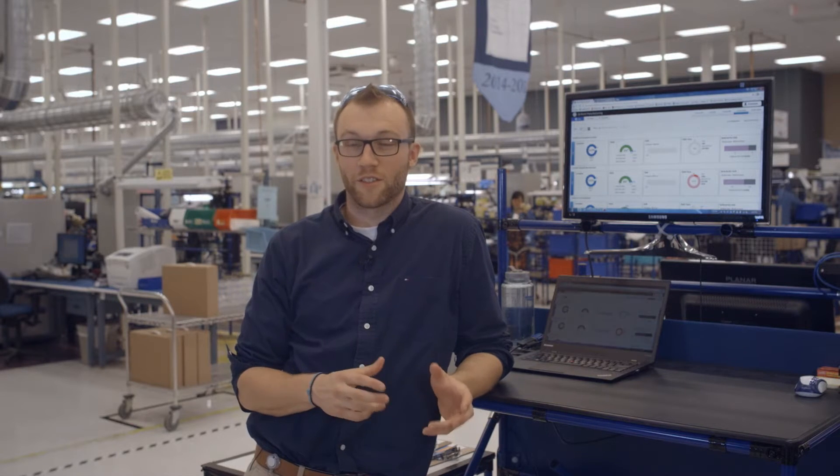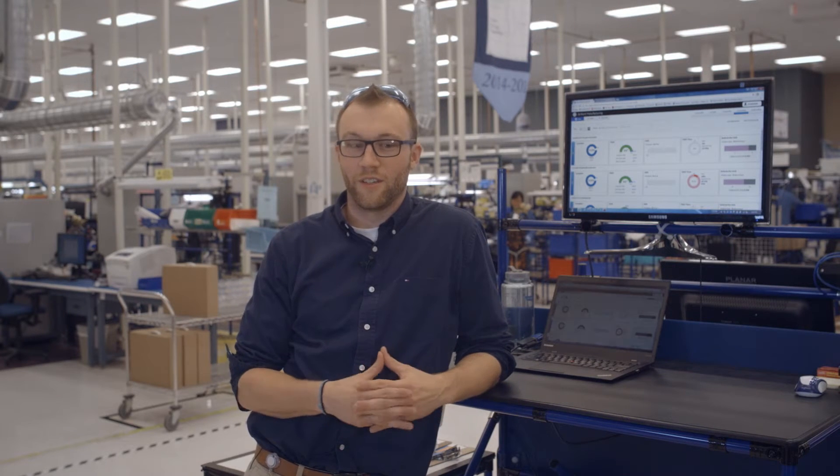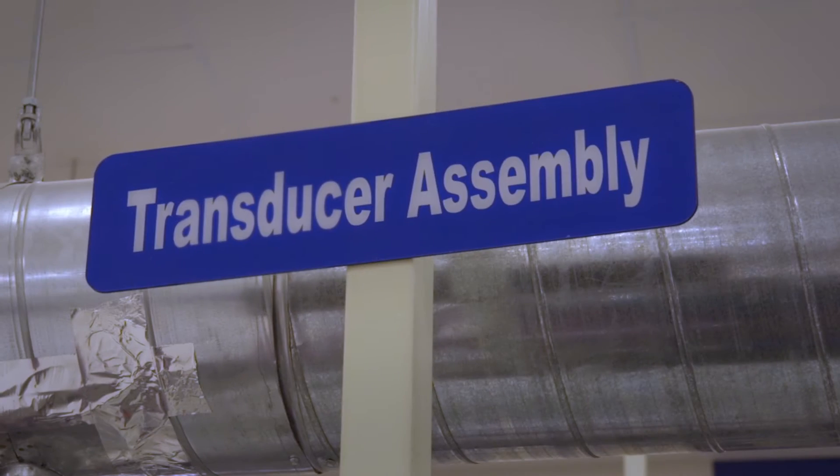We're dealing in the medical field, so everything needs to be really high quality. Someone's life could depend on it. The manufacturing process complexity is very challenging, and we're talking about working on micron scales for us to be successful.